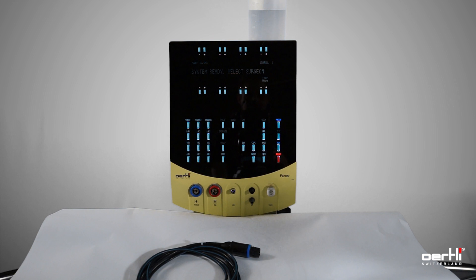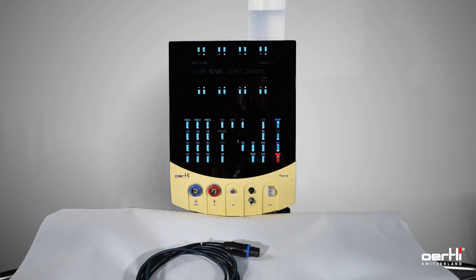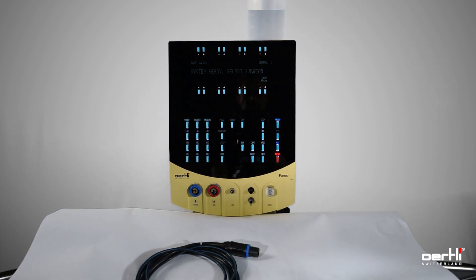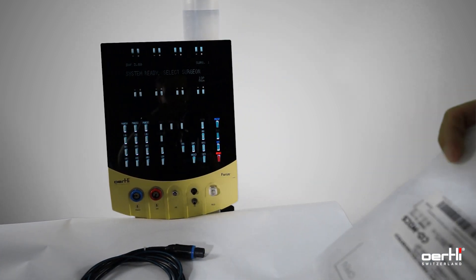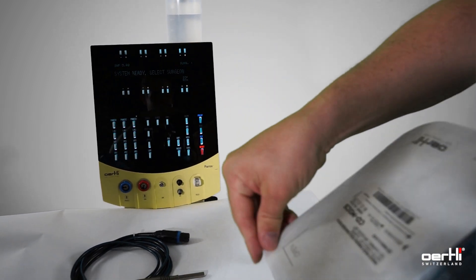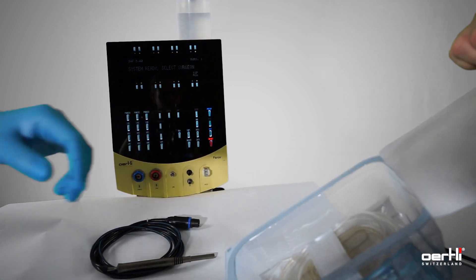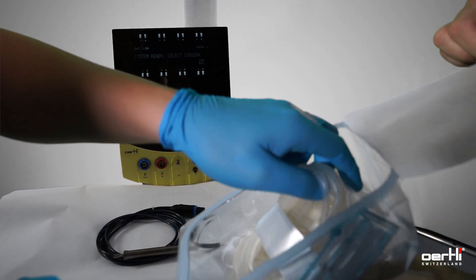Let's install and prepare a cataract surgery with the Pharos. First, let's unpack the pack and grab the items.